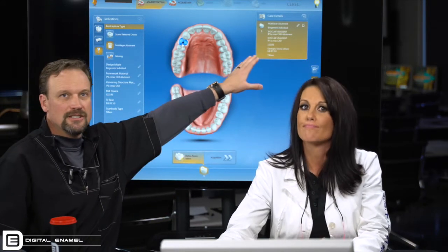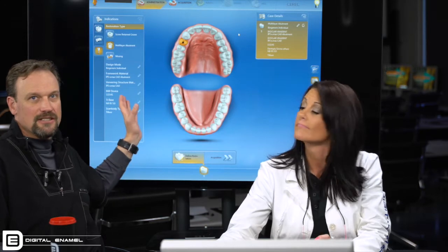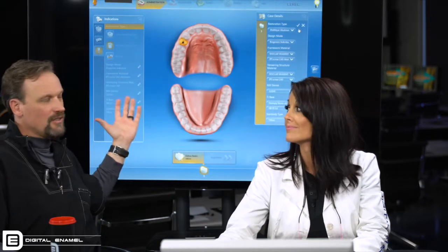We're going to select the tooth we're doing. After she selects the tooth, this generates over here — these are the case details for this restoration. The administration phase on the left-hand side is basically how to generate the restoration, and what's over here are all the details. So if you're going to change something, you go to the drop-down and change it here — you don't put it over there because you'd just be adding another one.